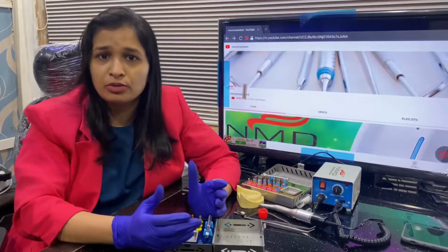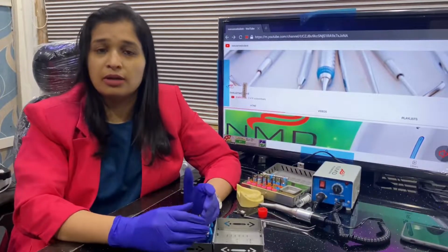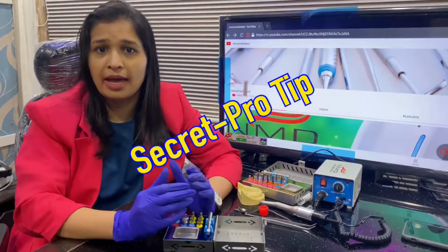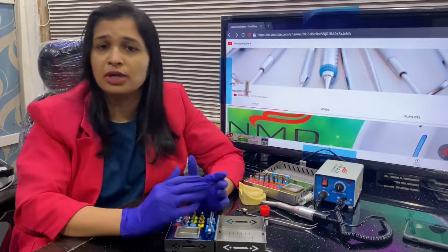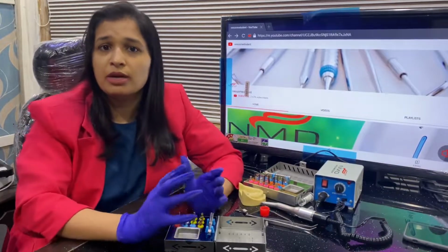So what you're going to be using is something called expanders. And also stay tuned, because at the end of the video I'm going to be telling you a pro tip which is going to help you in most of your cases, or sometimes if you get stuck while doing an implant, these tips can help you.